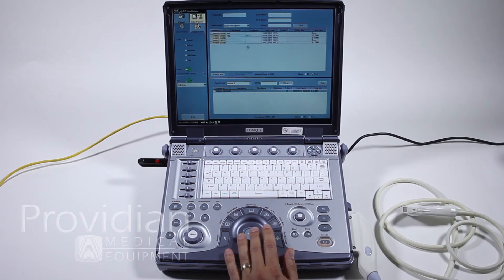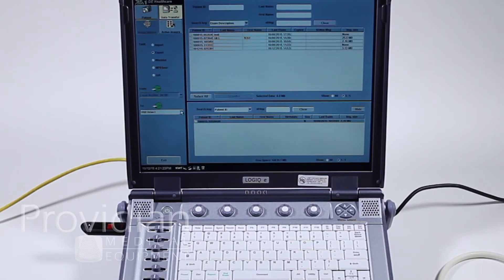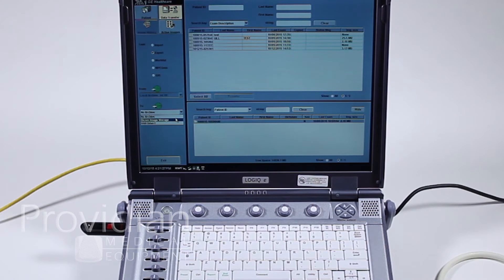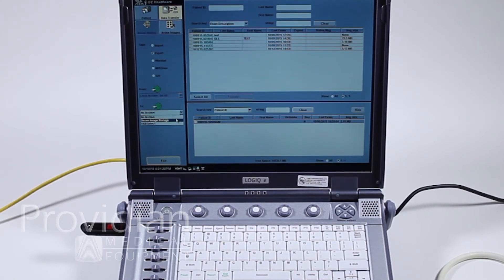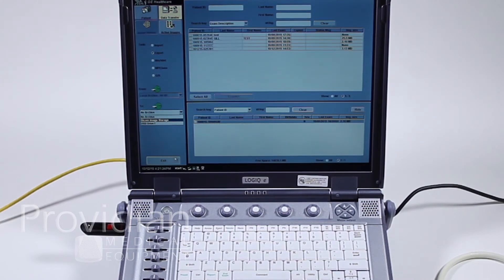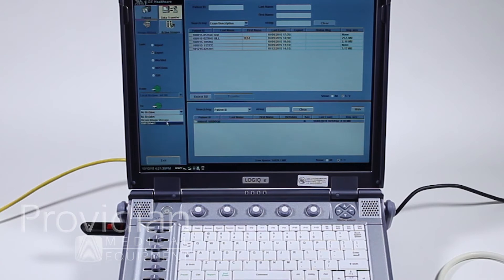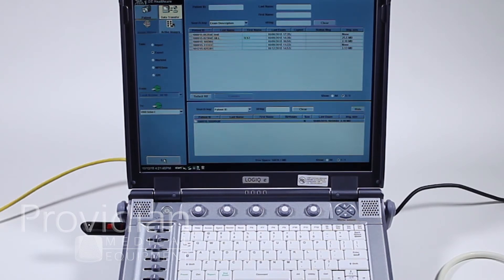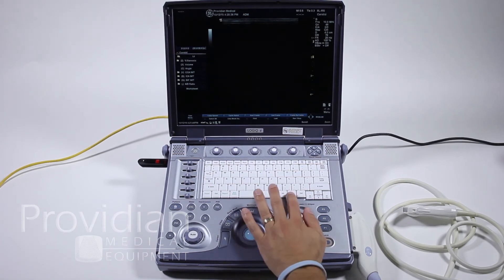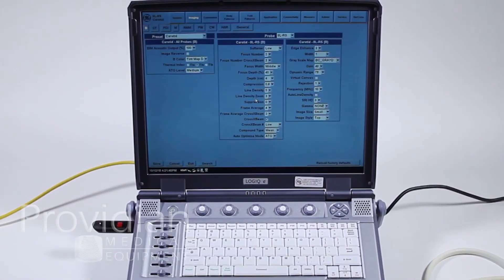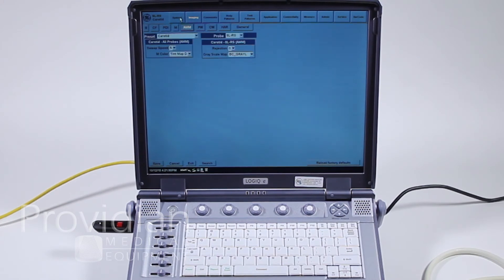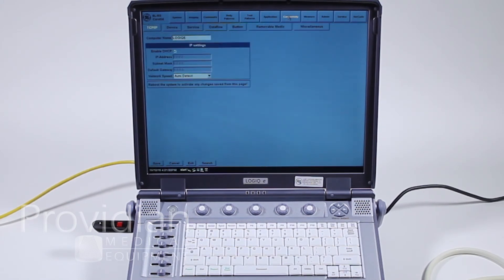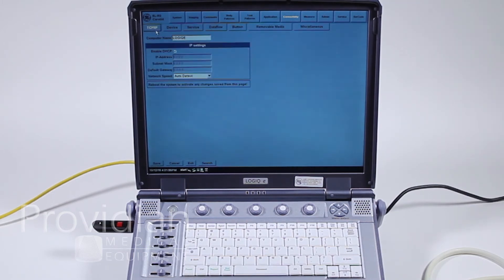If that's easier, I do recommend doing that rather than AVI and JPEG. But if we want to transfer to a network, first we must connect to the network. Right now, you'll see here I have a DICOM image storage. You may or may not have this here, but even if you do, it's probably set up for somebody who had the machine previously. You want to make sure that you have this set up correctly. In order to do that, we're going to click exit here, get out of this screen, and we'll go to this utility menu.